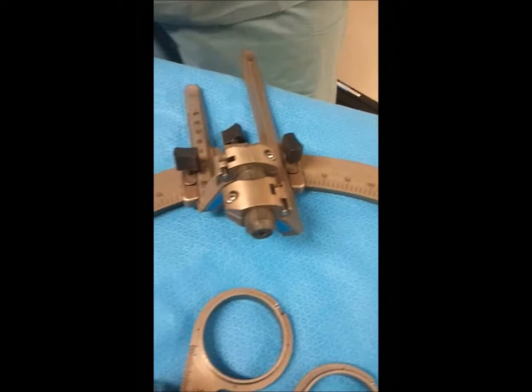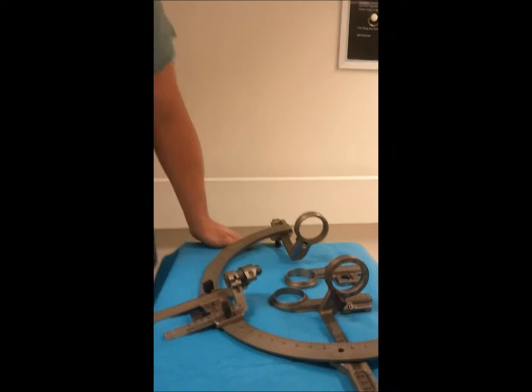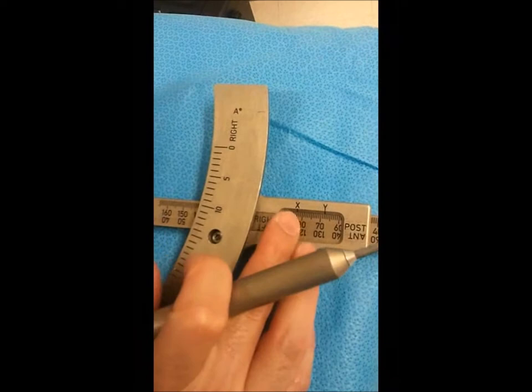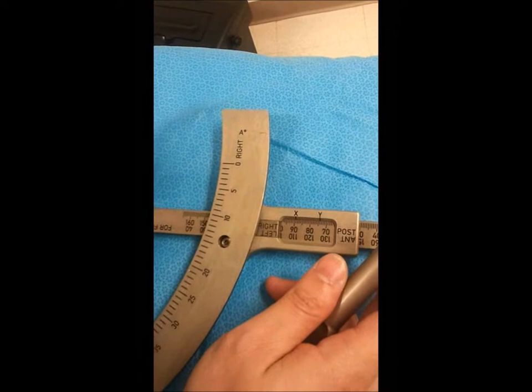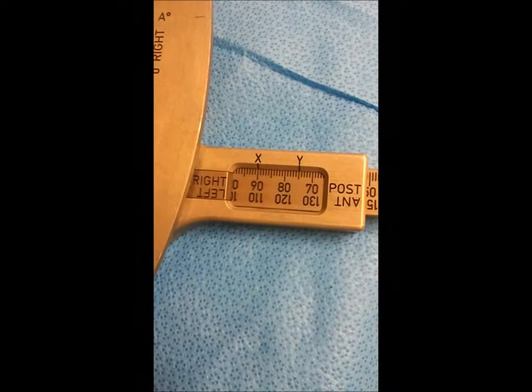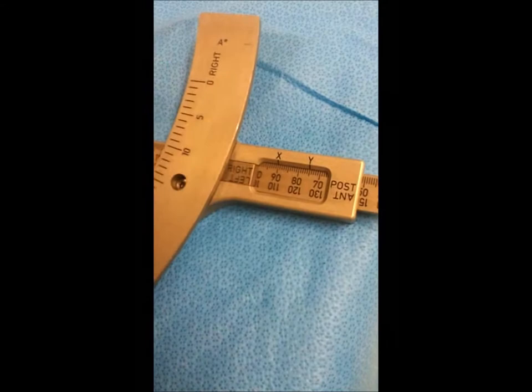The next portion we need to work on is, after we get our coordinates set up from our planning station, we'll have to adjust the X and the Y. We can pick an arbitrary number for our lateral target X — we'll make that today 90. We pretty much always use the X as standard, not the Y. It's very important that you have somebody double-check how you localize your offsets in every direction: AP, lateral, and vertically, ring and arc. We'll set that to 90 because as you're screwing it in, it can change a little bit, and if you're tired, it can be difficult.